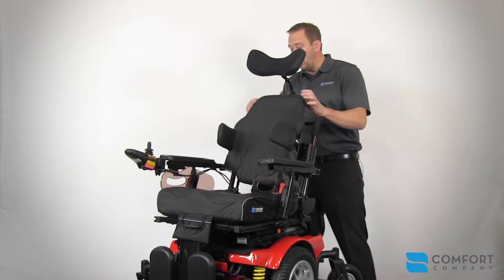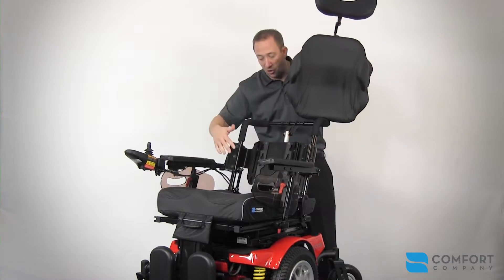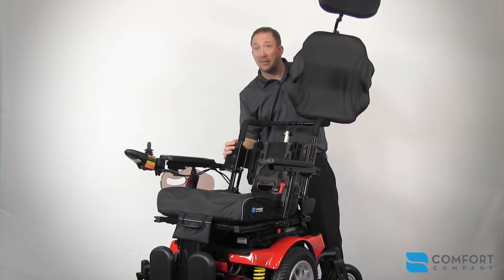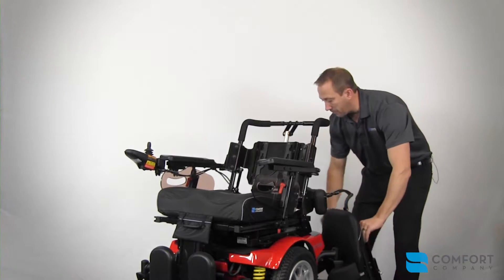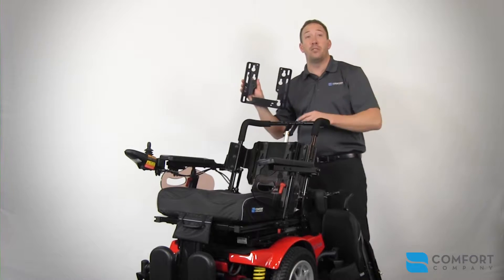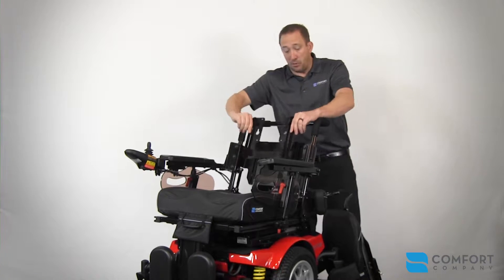The solution was a collaboration with Avid's design team to build a unique adapter plate that works with their power recline seating system and our Compass Power Mount system. The Compass Power Mount system consists of two components, the first being the mounting bracket which has two tracks and attaches with four bolts to the Avid adapter plate.